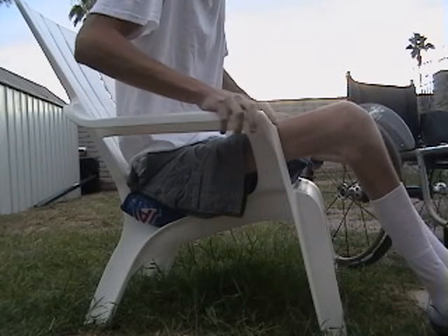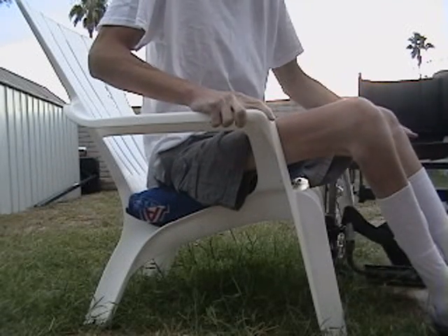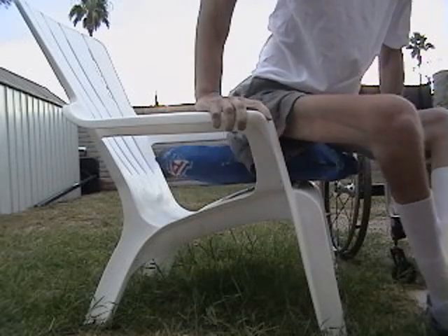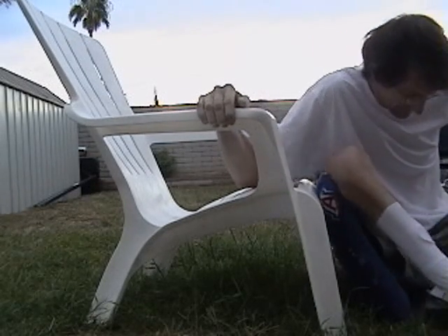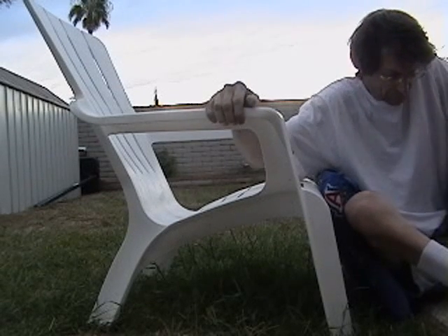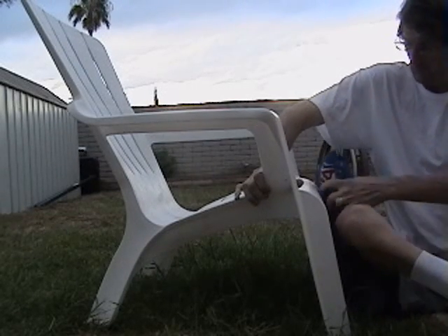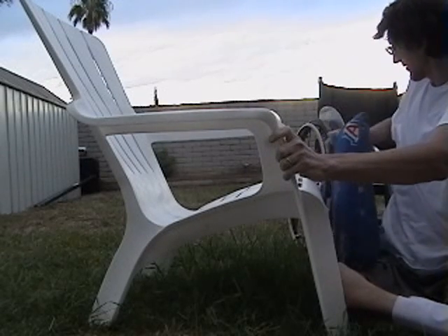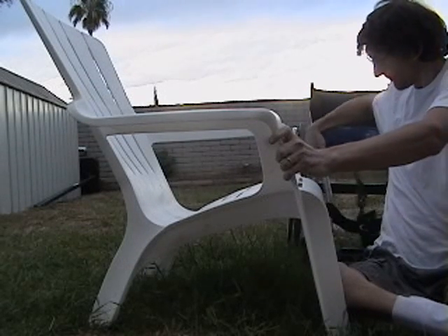But how do you get the cushion out from underneath you and put it back on the chair without falling out of the summer lounge chair? I kept pulling the cushion down with me whenever I would transfer onto the ground. Maybe it was gravitational pull or something like that. So I figured it was best if I just transfer onto the ground, get my cushion, and then put my cushion on my wheelchair.